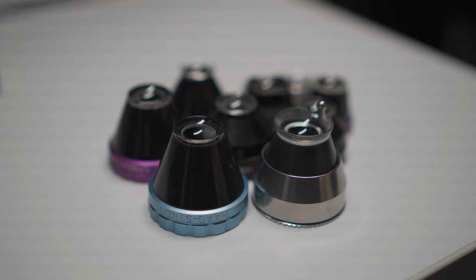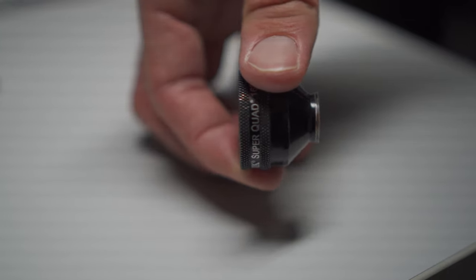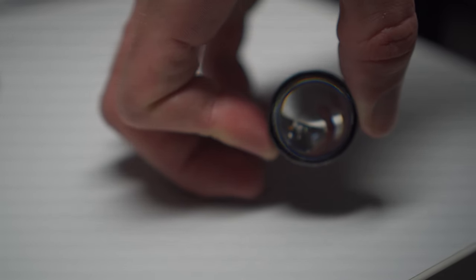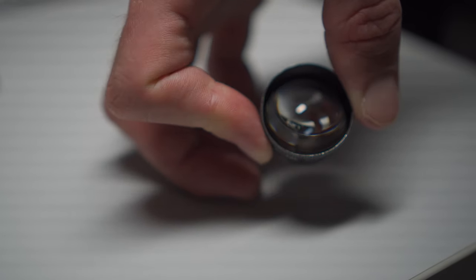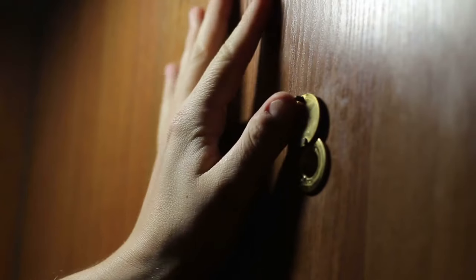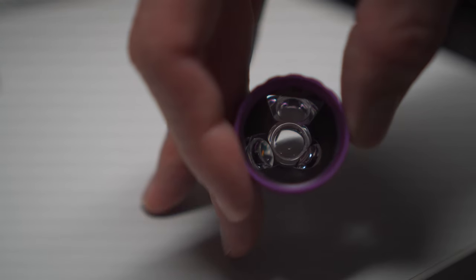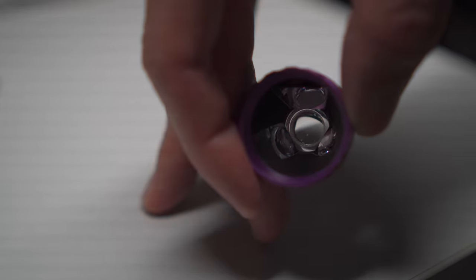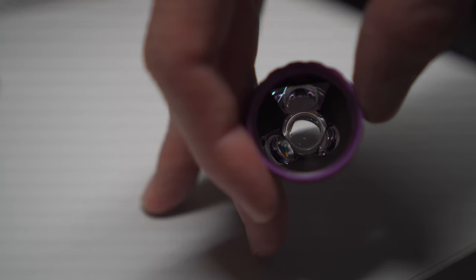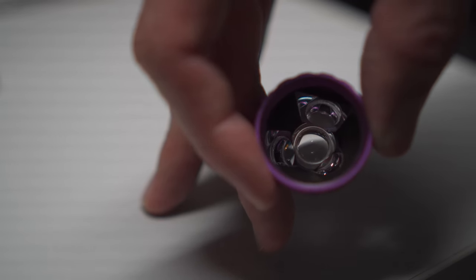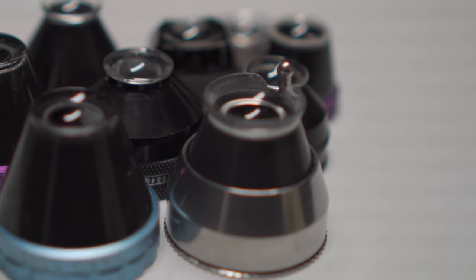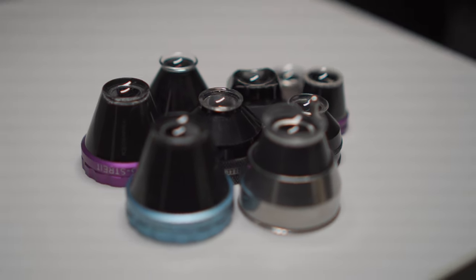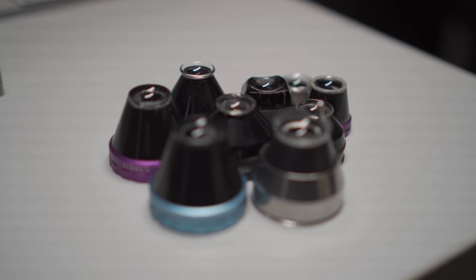For the contact lenses, there are basically two types of lenses. For the classic lens, you have something like a fisheye lens which produces a very small image with distorted periphery, much like the peephole in your door at home. The mirrored lenses allow you to look around the corner for very anterior tears, and they're also great if you do some scleral indentation while performing your laser, but we're not going to get into that in this video.